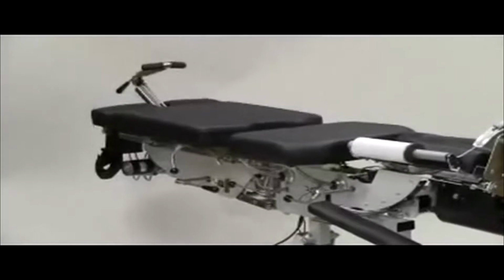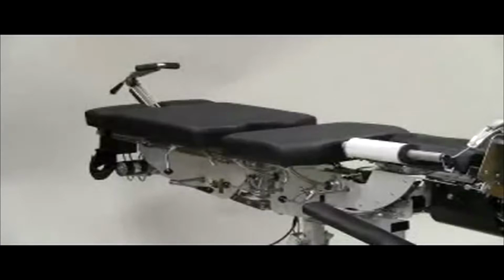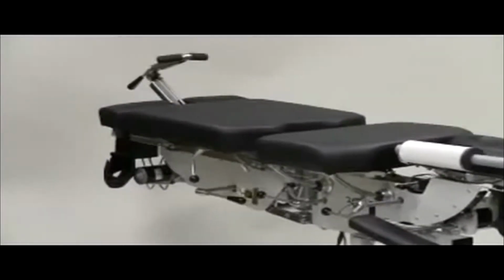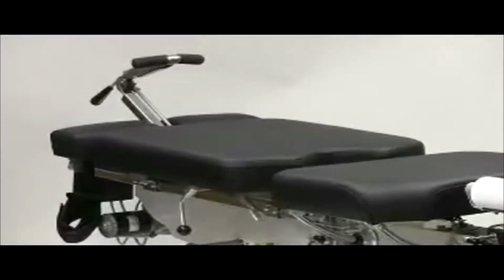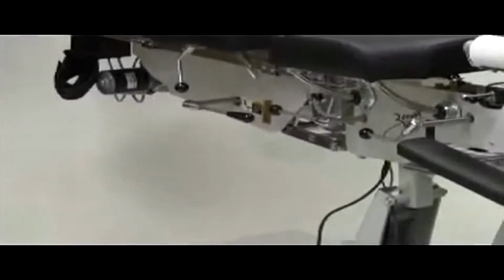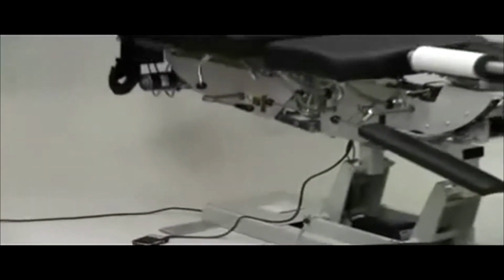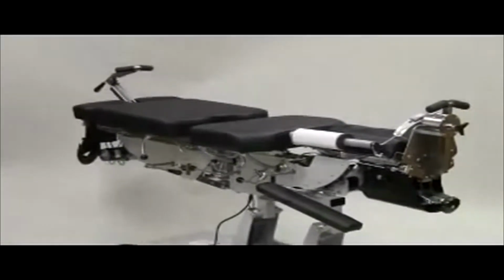The tilting headpiece also includes a face paper toweling dispenser. The thoracic cushion is available with the optional pivotal thoracic rotation. The caudal flexion distraction section includes a power balance leaf spring design and a tension indicator. This system preloads the spring tension for the caudal section. It includes a remote foot switch for operating the table from either side and a caudal assist handle. The caudal section includes lateral bending, flexion extension, and the circumduction feature as standard equipment.